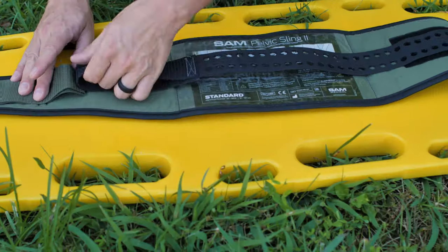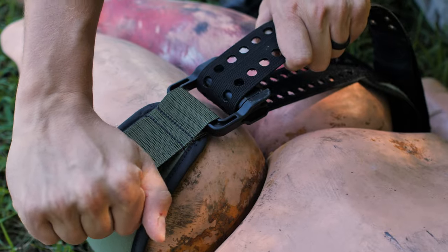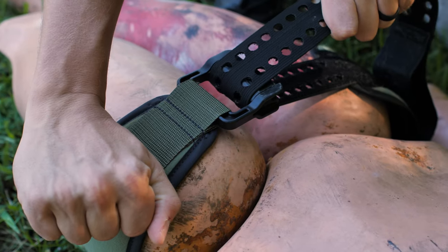If available, use a commercial pelvic sling or device like the SAM pelvic sling. If you don't have one, you can improvise, but your first choice should always be something actually made for that job — similar to a tourniquet. You can improvise a tourniquet, but the best option is always a device made for that specific purpose.